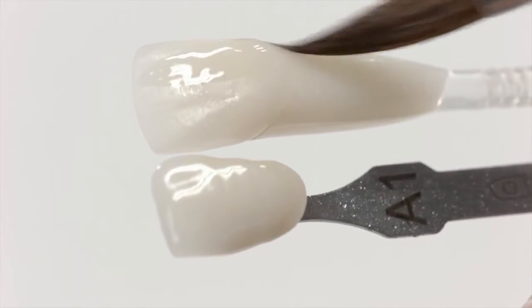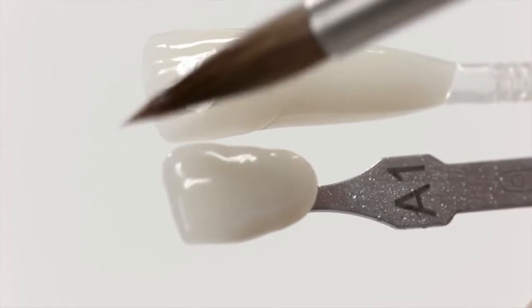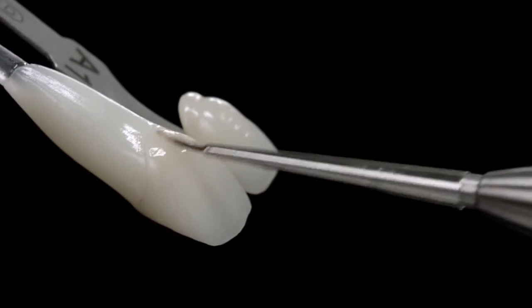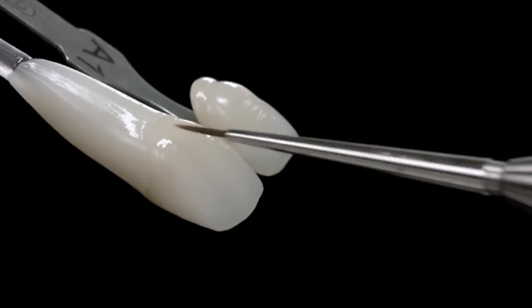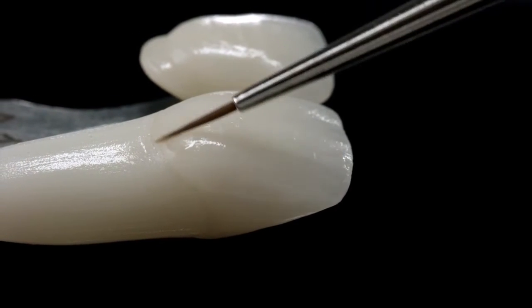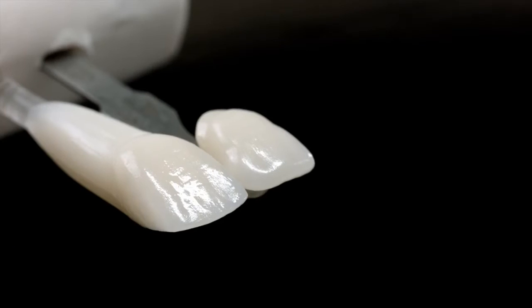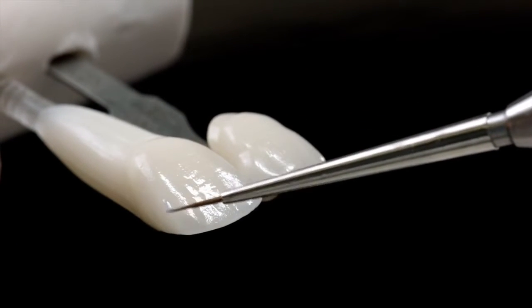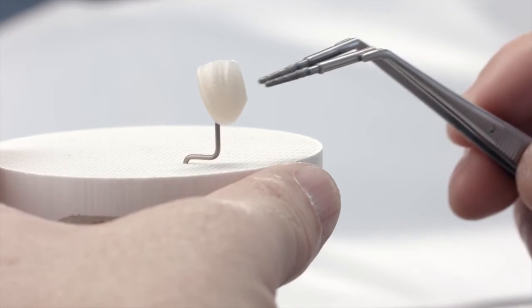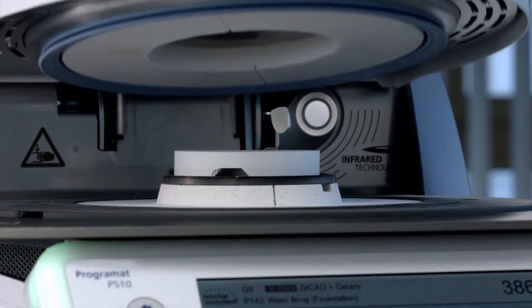Wet the cleaned restoration with the mixing liquid — this will help to achieve a homogenous shade application. Apply the shade paste in a very thin layer and compare the color intensity with the required tooth color in the shade guide. The paste consistency influences the application behavior and firing results. A thicker application leads to an inhomogenous color effect. A more intense shade is achieved through repeated staining and firing, not by applying a thick layer. Now carry out the stain bake.